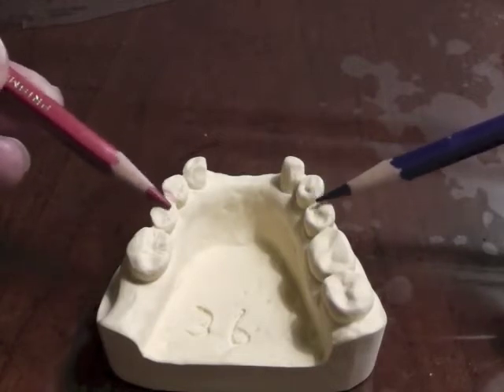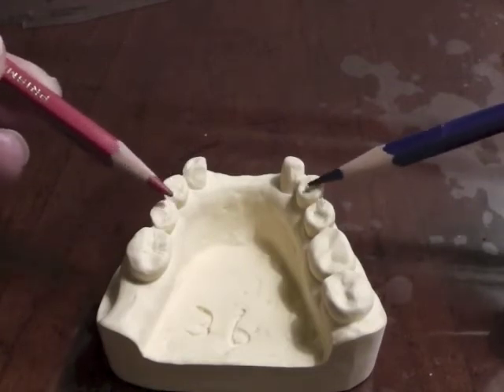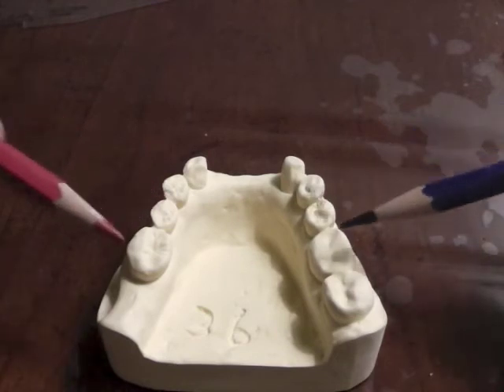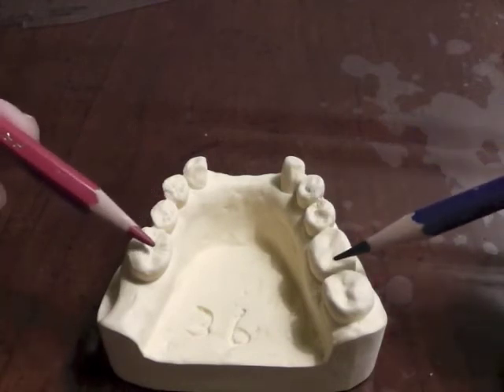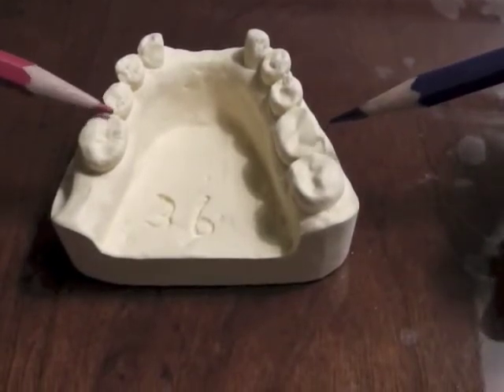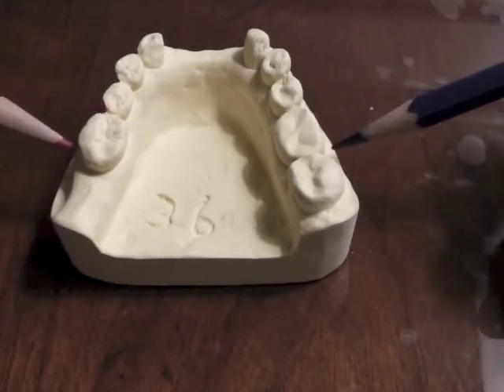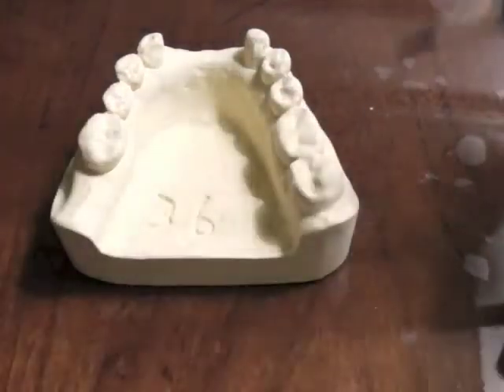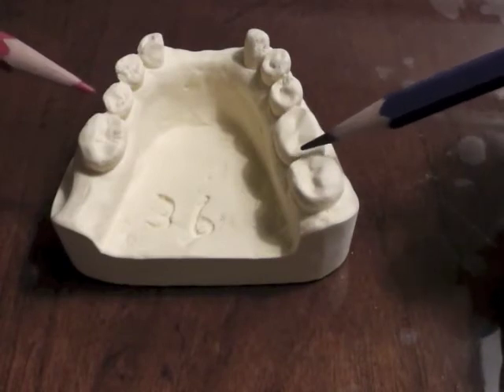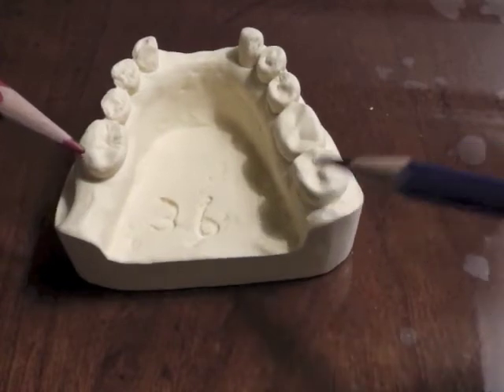But if we put an embrasure rest in that area, then when we bite on that tooth, both teeth will depress and you will not get that wedging effect. So we would have an embrasure rest here. For our direct retainers back in this area, we will place an embrasure rest either here, here, or here — depending on whether we decide we're going to grab the distofacial or distolingual of the molar. If we go back farther, we'll have an embrasure rest there and grab either the distofacial or the distolingual.